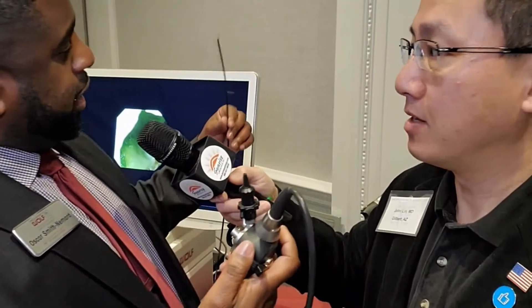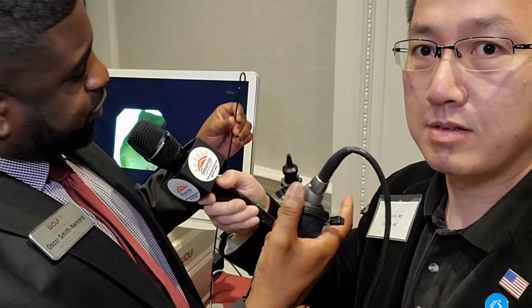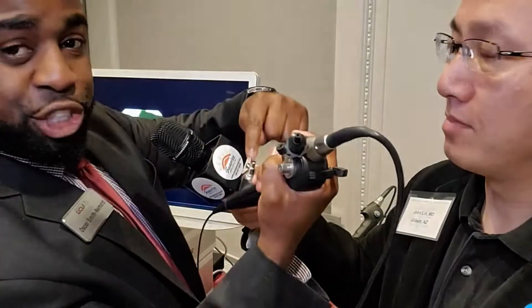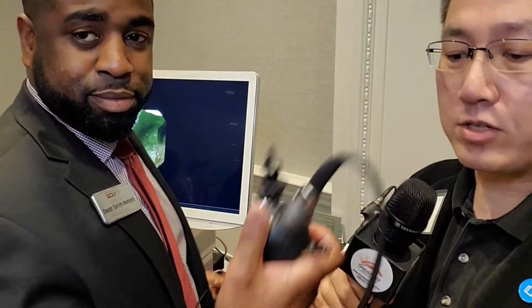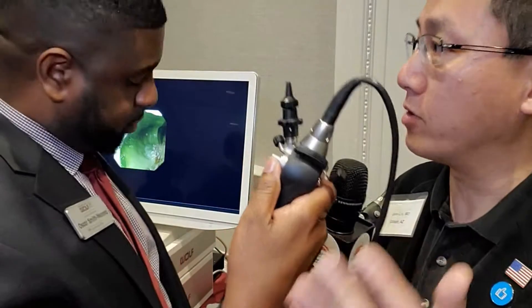This is where the money is — this is our laser shifter. You can actually preload your fiber in place, get to your stone, advance it, lock your scope in place, and use this lever to advance your laser fiber forward and backwards. Once you've done fragmenting your stone, you can basket out of the second channel. So if you ever get a fragment stuck, instead of having to cut your basket and waste $300, you can just advance your laser again, break off the stones, and keep going. This lever to lock the position of the scope is really helpful if you're doing everything by yourself.